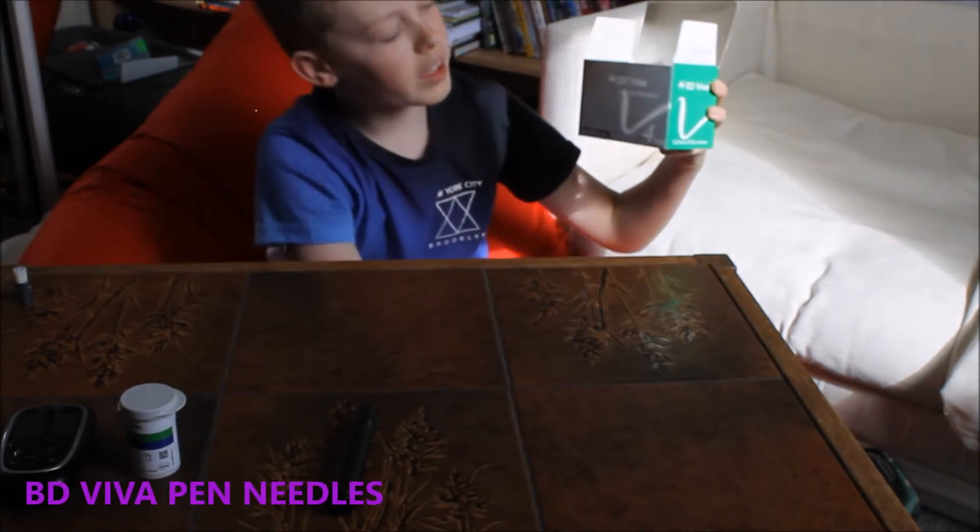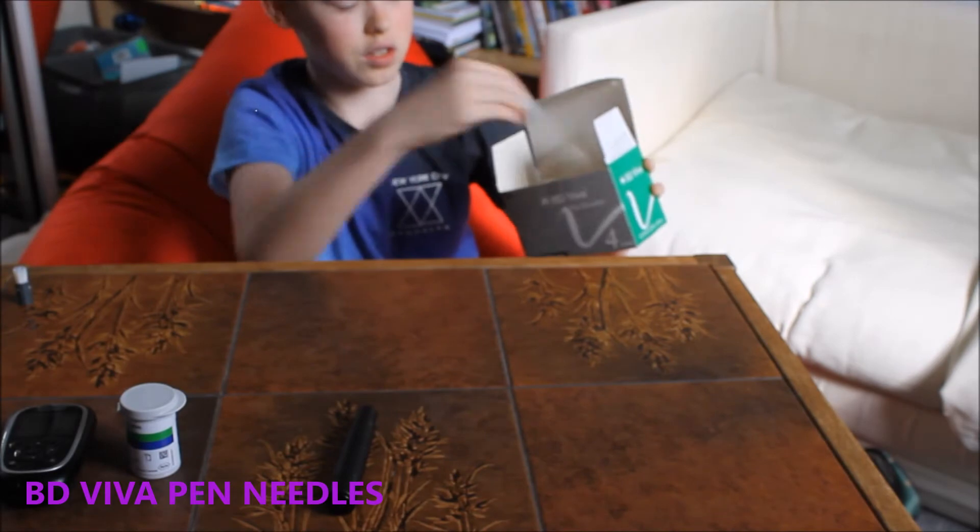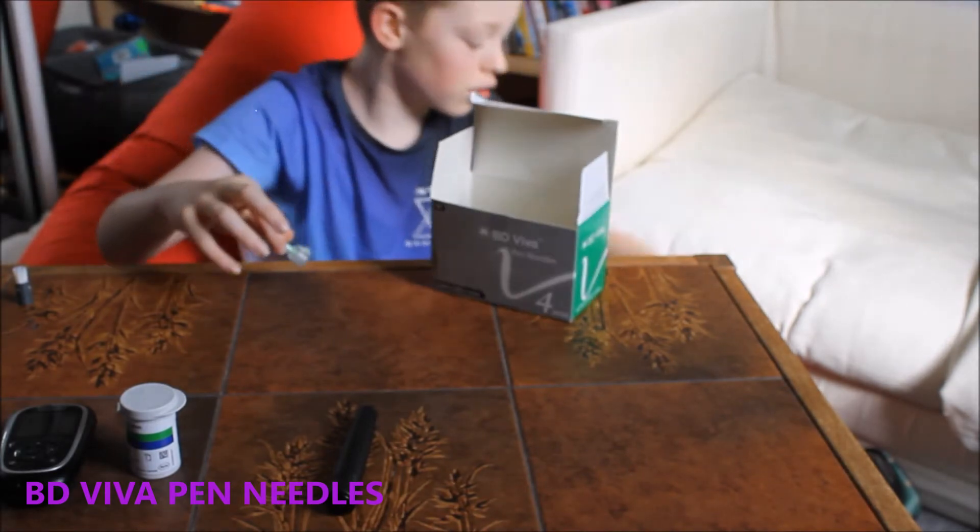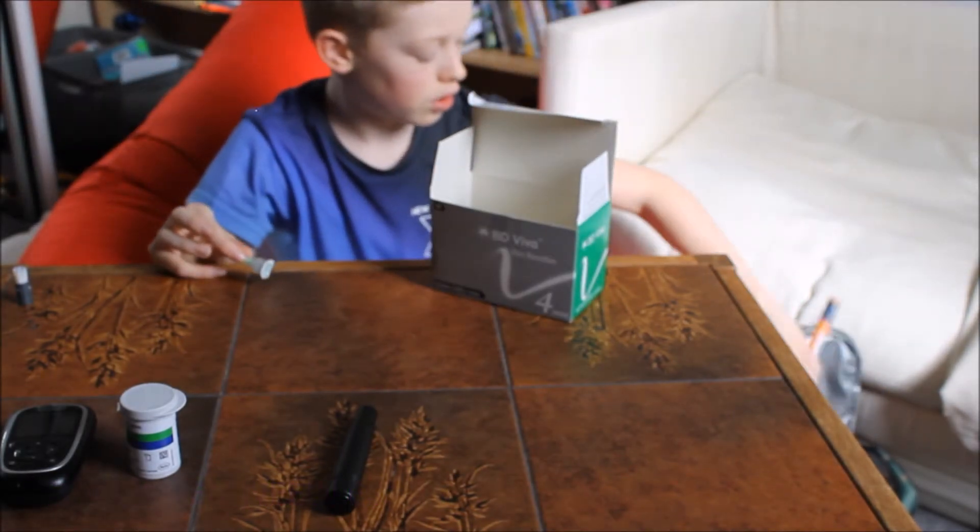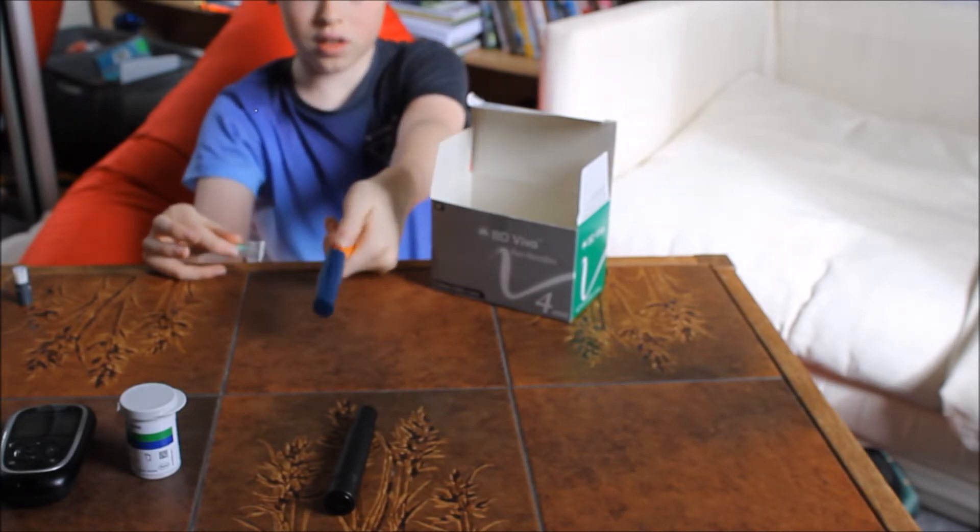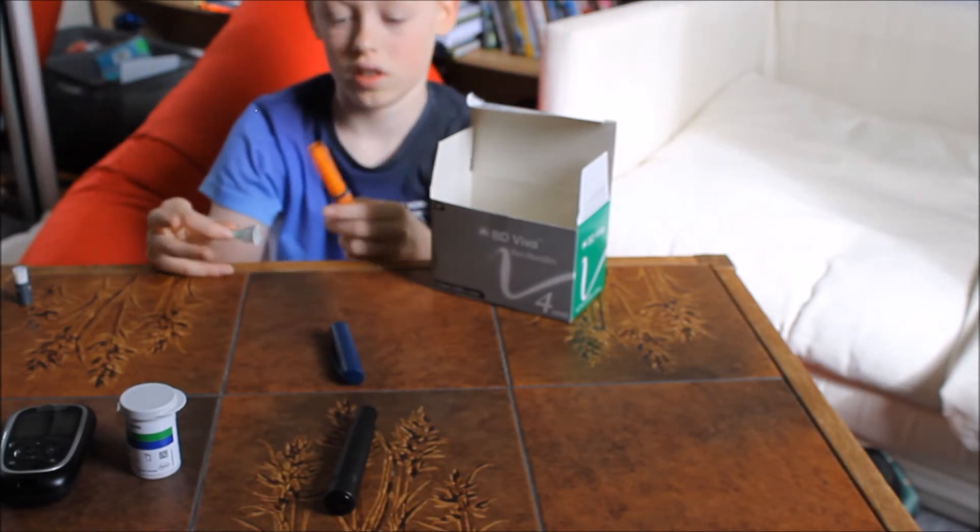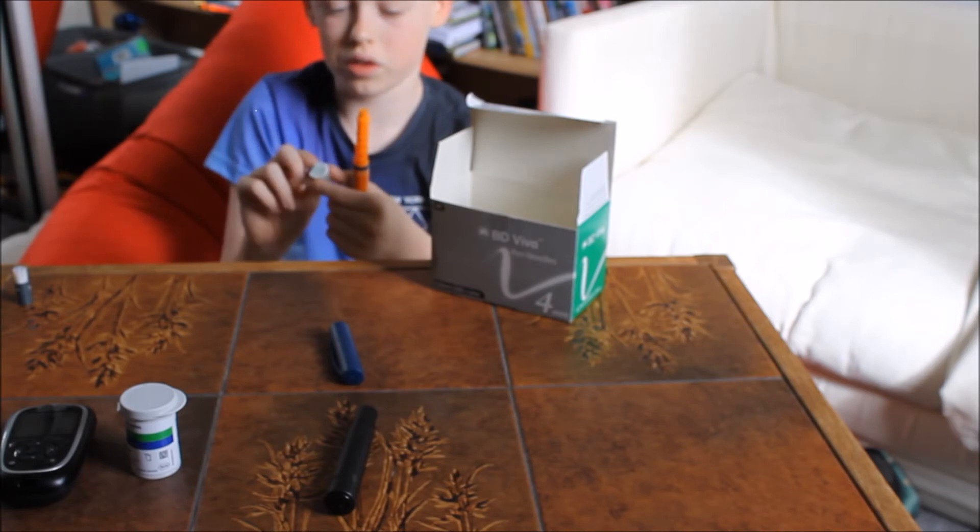Secondly, let me move this. These are BD Viva pen needles. They look like this and they're used for your insulin pen, which I've got right here.